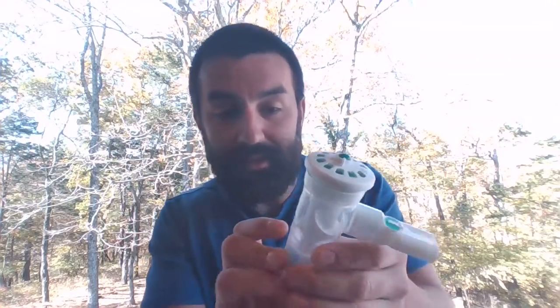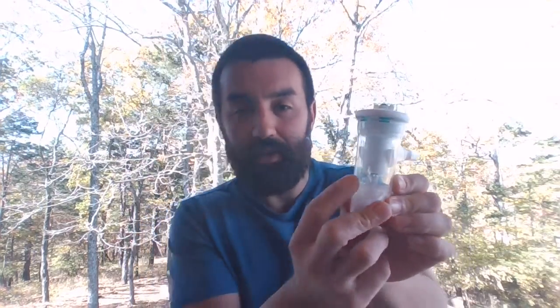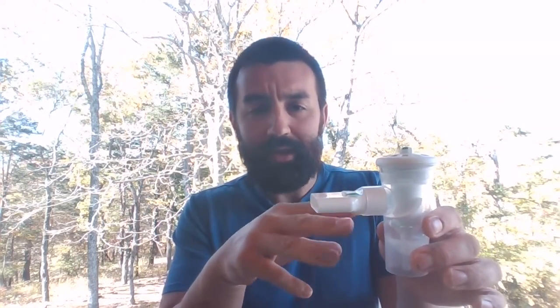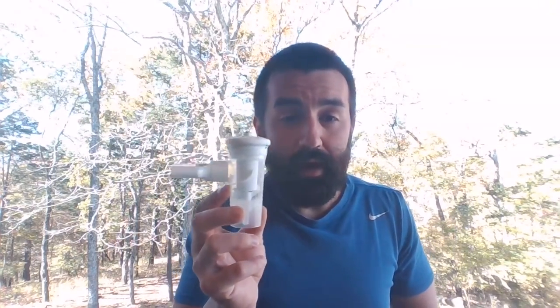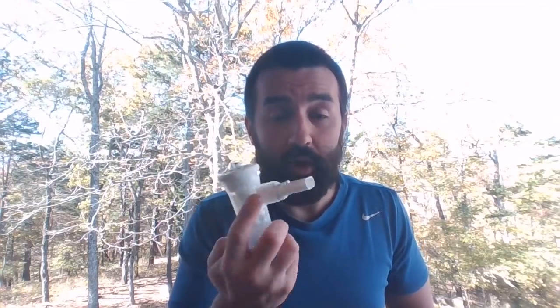So the way this would be set up, if I had medication inside of this, and same deal, I got my fill volumes over here, the lines and things like that, you'd hear gas going in, but you wouldn't see any aerosol emitting, okay? It's because we have the ability to make this breath actuated or inspiration only. So the patient takes a breath in, you'll see this little thing drop down.